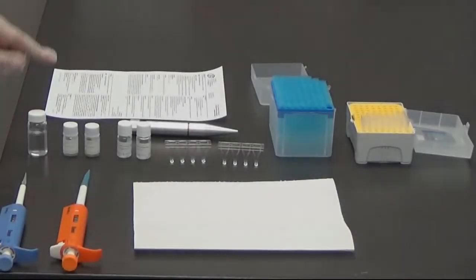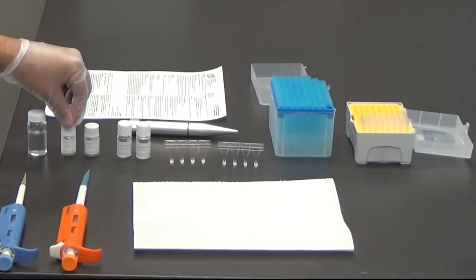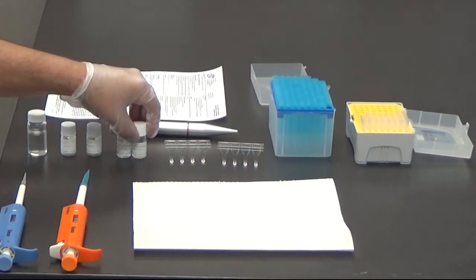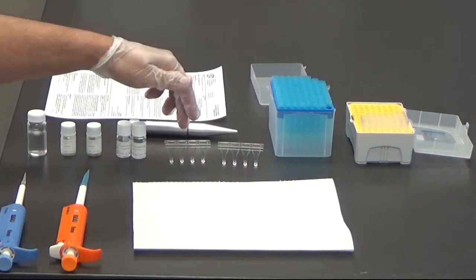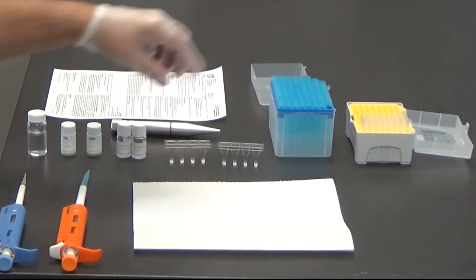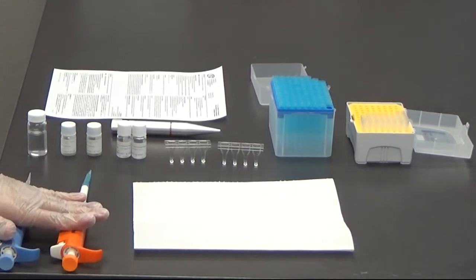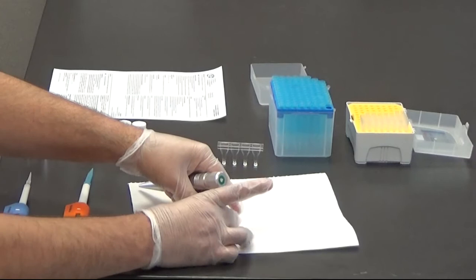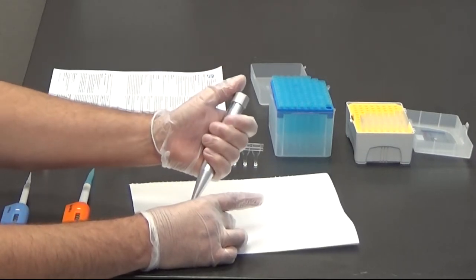When preparing a test for the TS4000, review the insert sheet for the instructions. To prepare the test, you will need DI water, control level 1, control level 2, reagent vials, cuvettes, steel balls, pipette tips, and pipettes. The first thing the user will do is dispense steel balls into the cuvettes.